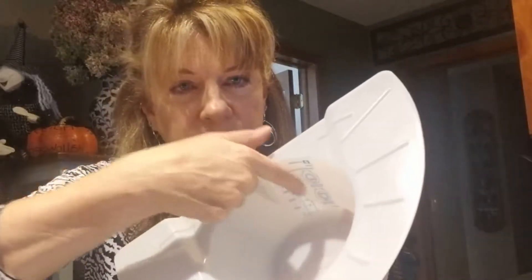These are especially good for someone who needs to measure their urine output, and you put it on the toilet because it has little measurement markings. They're disposable plastic and don't cost much. You don't want to use them more than once when getting a urine specimen, because once urine touches the container it becomes contaminated. It fits on a toilet — you lift up the lid and place it on the lip.